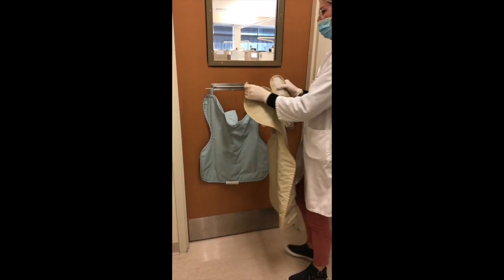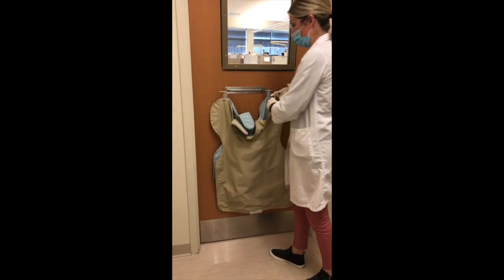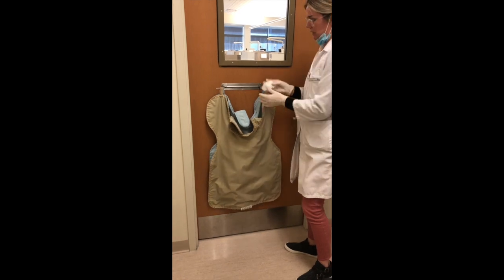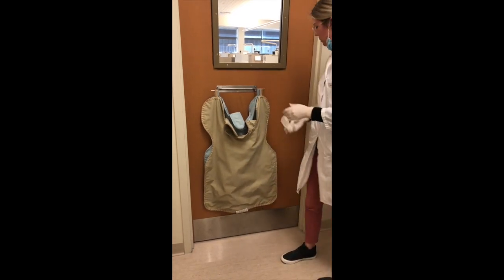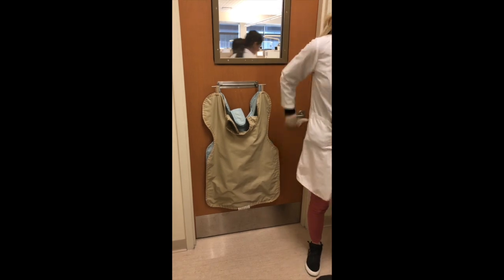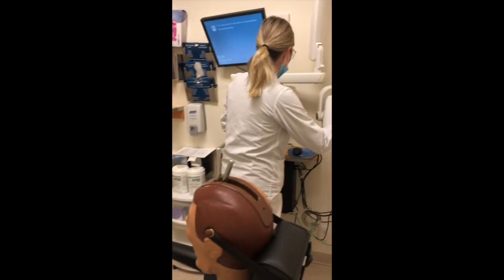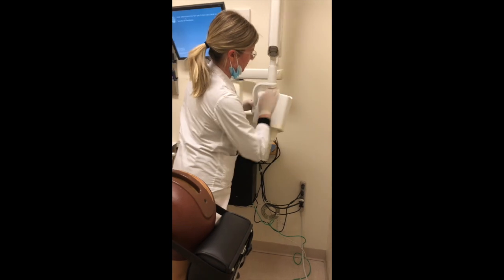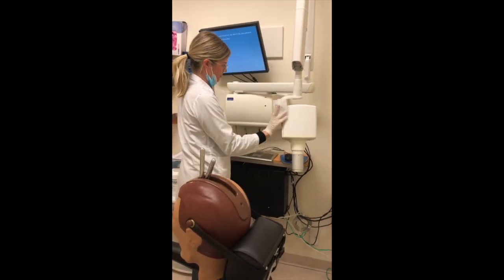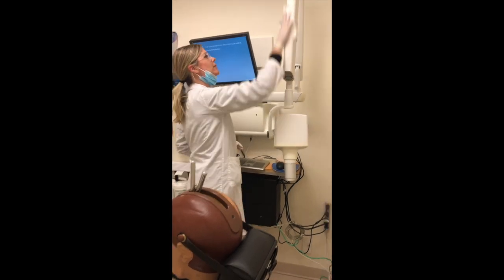I'm going to leave the lead apron here for now because I do want to handle it with bare hands when placing it onto the patient, but it is clean now. I want to continue wiping everything down — wiping down the window and moving to the x-ray unit, wiping everything down.